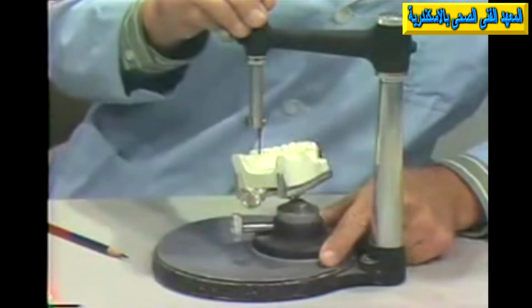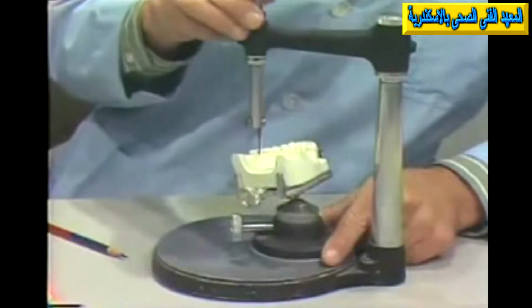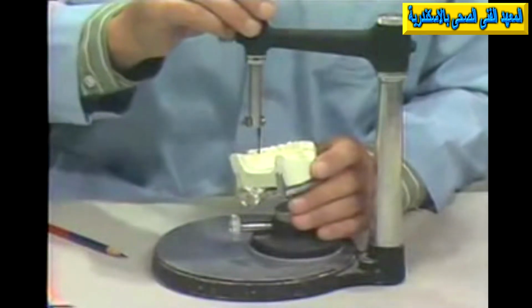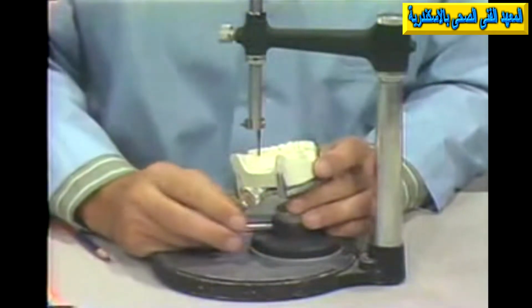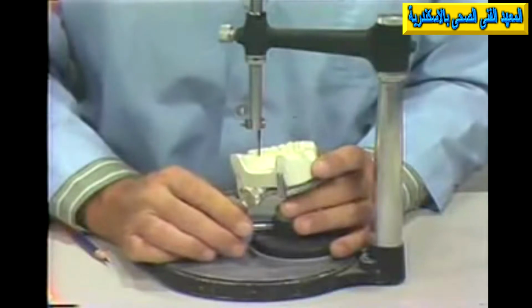it was fully seated. And the instant that it began to be removed in a vertical direction in the path of removal, it would become non-functional. It would leave the surface of the tooth and it would no longer support that tooth. So again, we would prefer to have a flat guiding plane and a flat reciprocal surface so that this could continually engage this surface and furnish continuous reciprocal action.